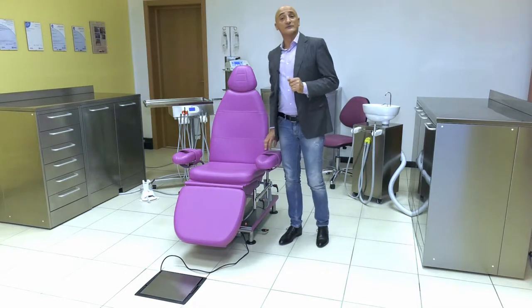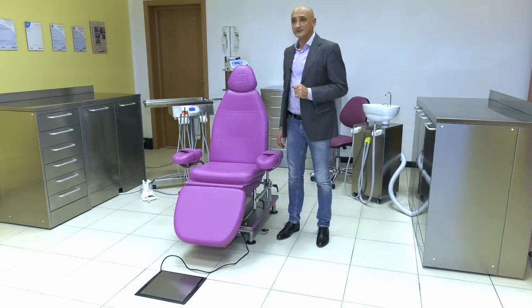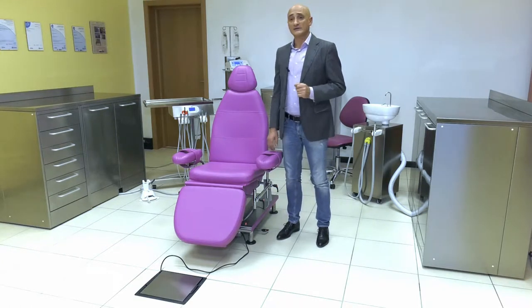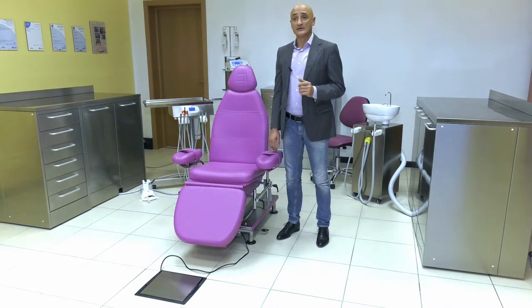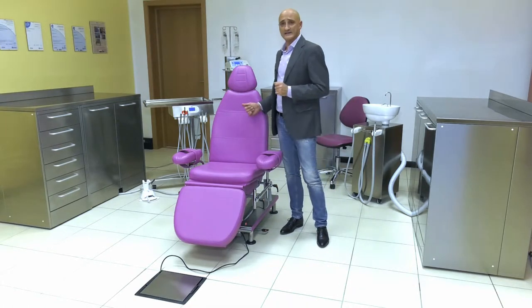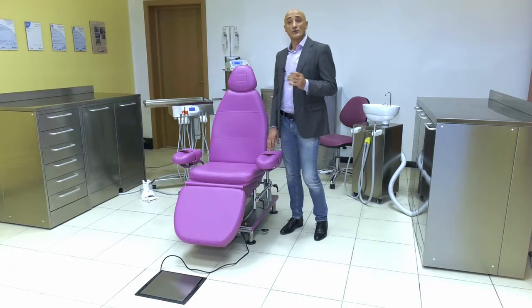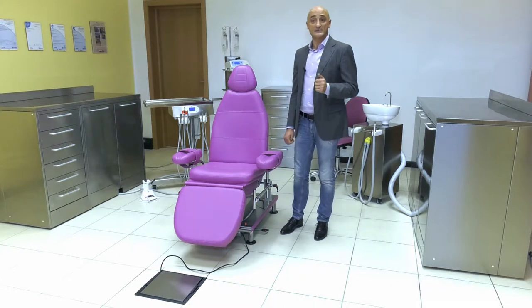Let me explain the fundamental difference between the Morpheus chair and a standard dental chair. As everyone knows, the standard dental chair has two motors for the lifting and lowering movement of the back and seat. This is rather limiting in surgery, and that is why our Morpheus chair has been equipped with four silent low voltage motors.